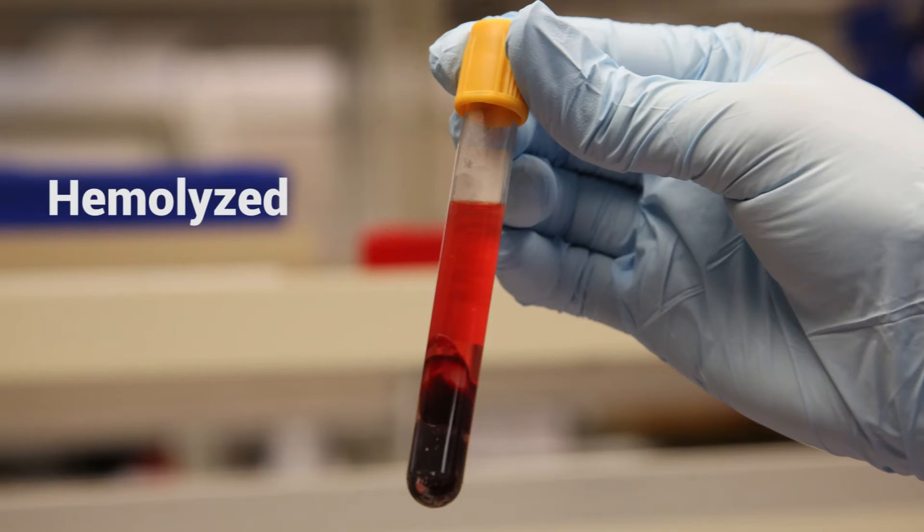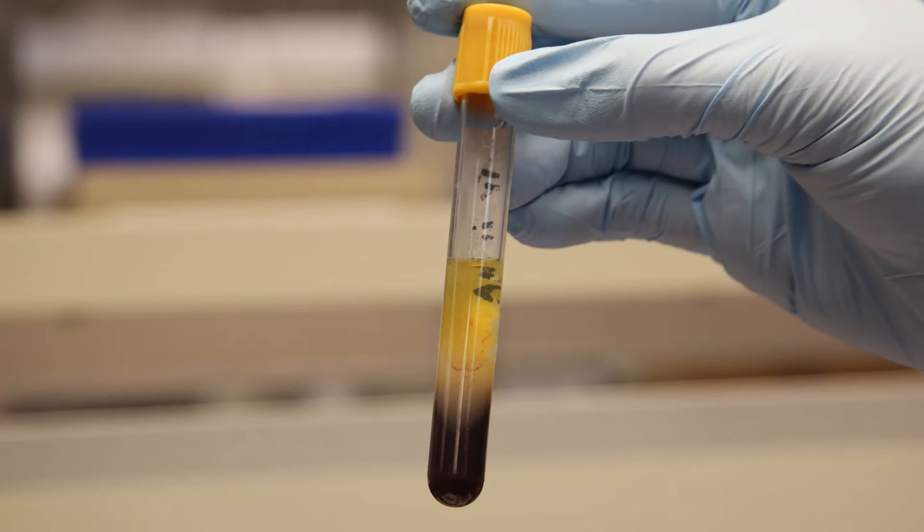The presence of a pink or red supernatant is an indication of hemolysis. Care should be taken not to miss noticing in vitro hemolysis because it can be an indication of a very strong antigen antibody reaction in which complement has been activated and the red cells have been lysed.